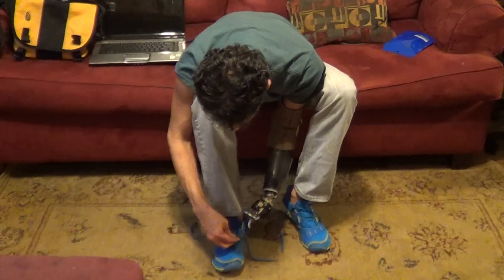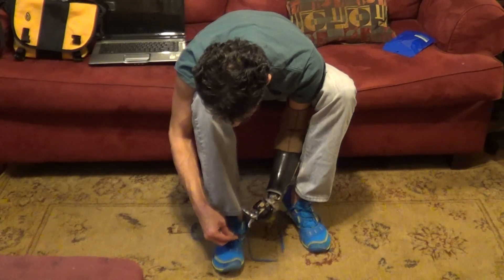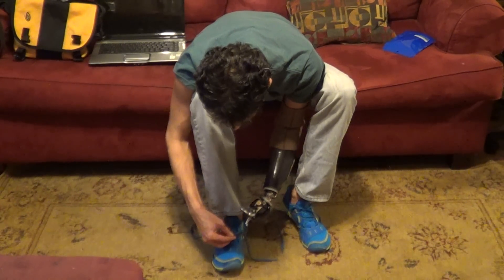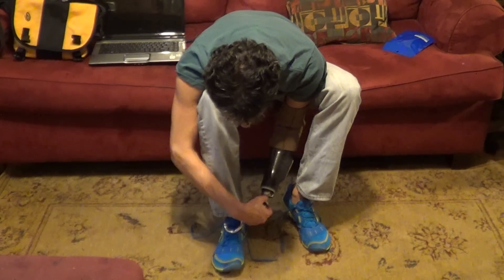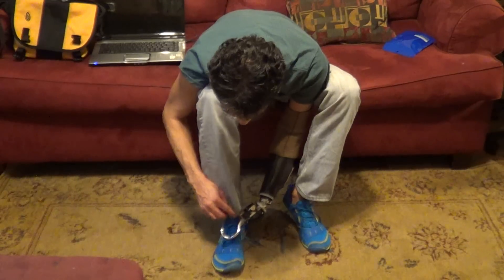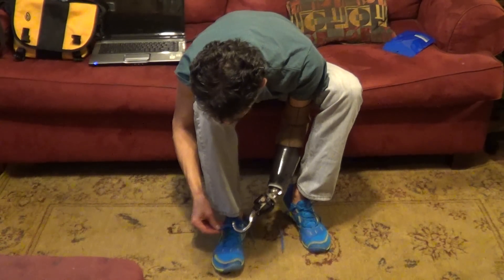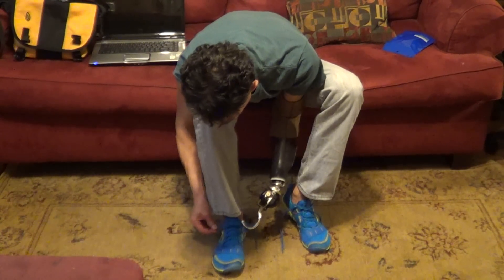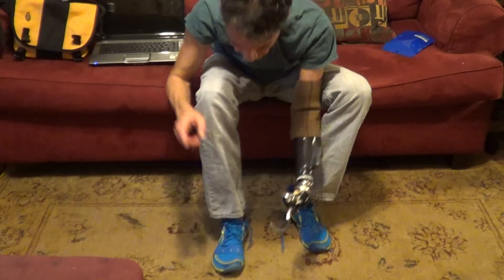Close, close, close, close, close. I'm down — that's when I make the loop. I've clamped down on it. I made a loop. I go back through here and open. That's one.